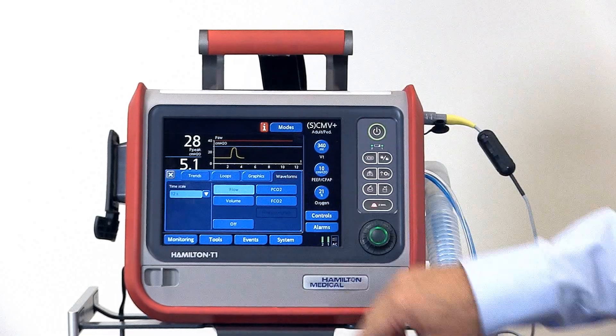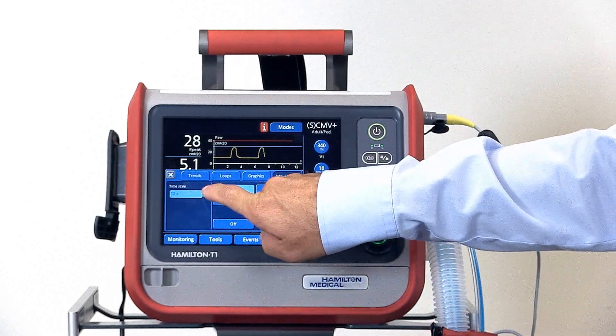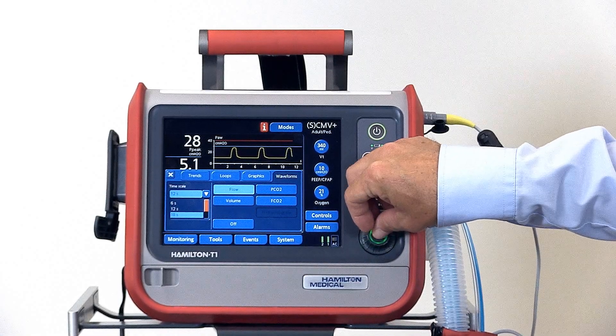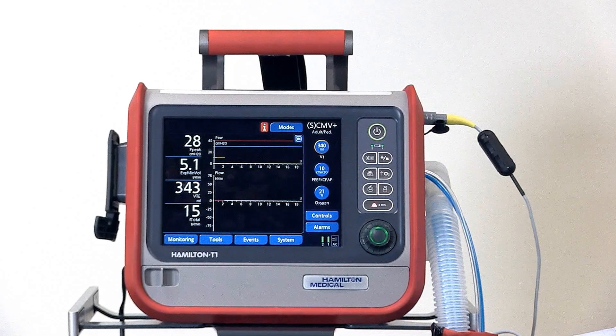We can also change the time scale of each waveform. Select the drop-down menu, select the time frame you'd like to see, and press the button.